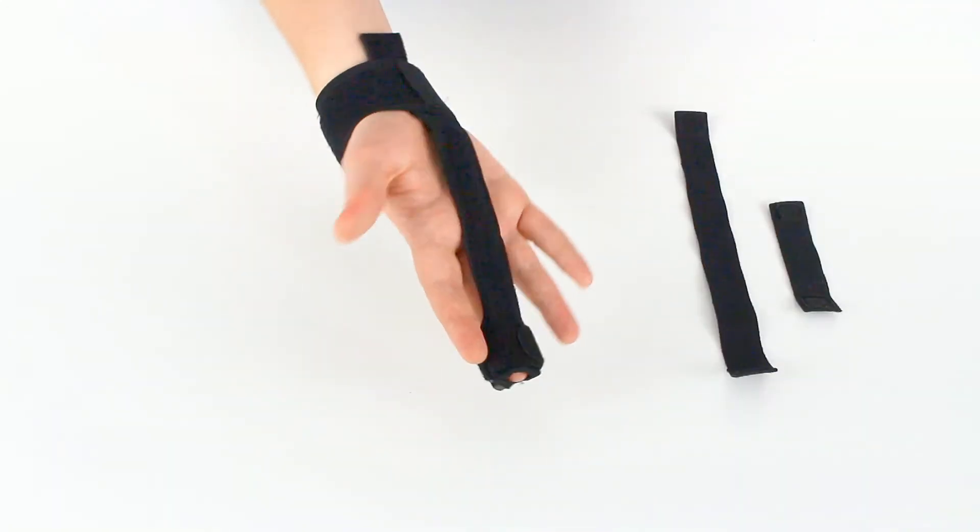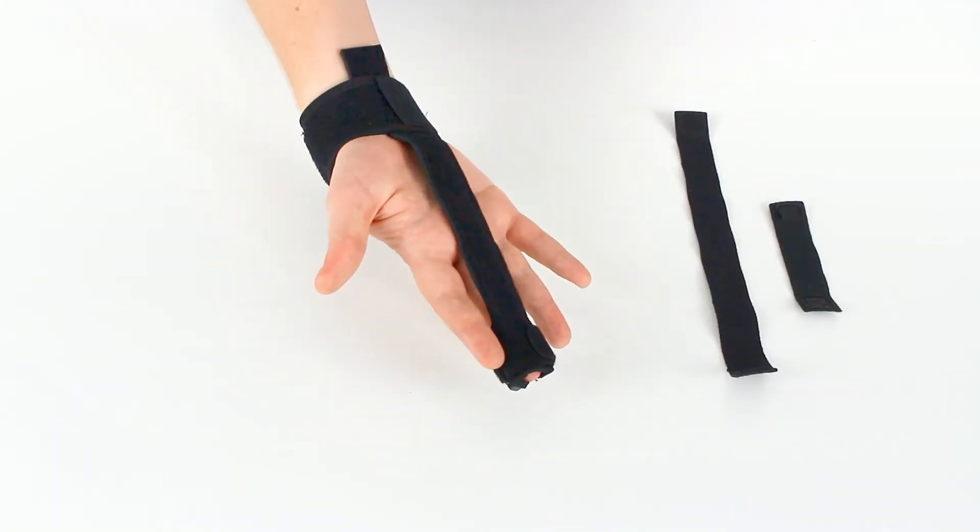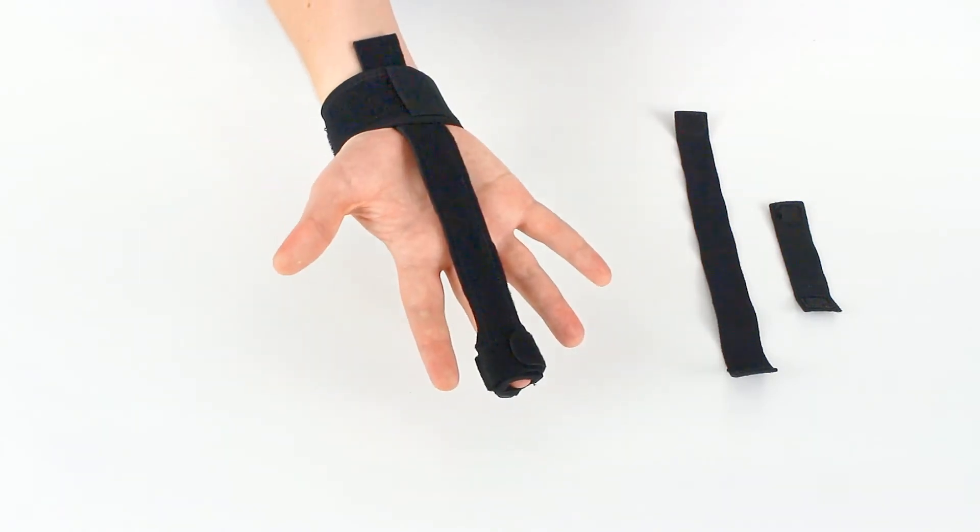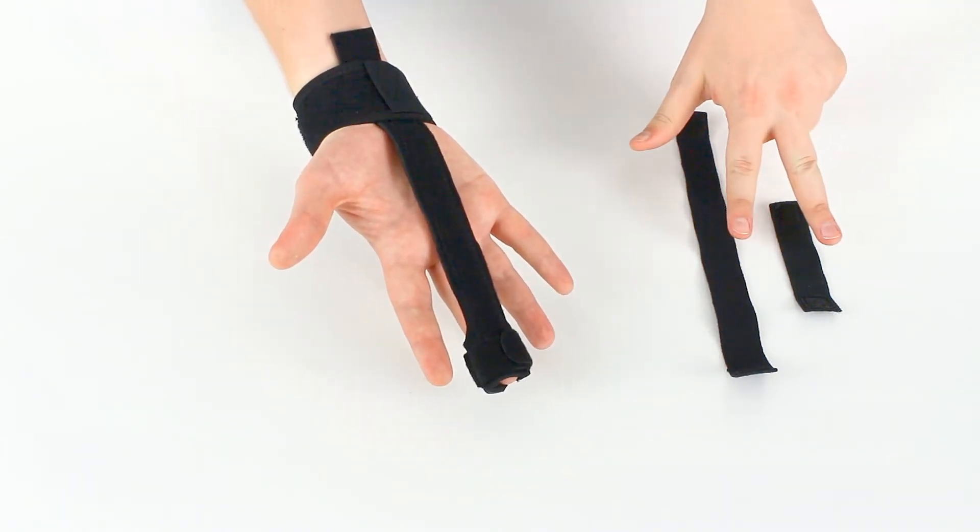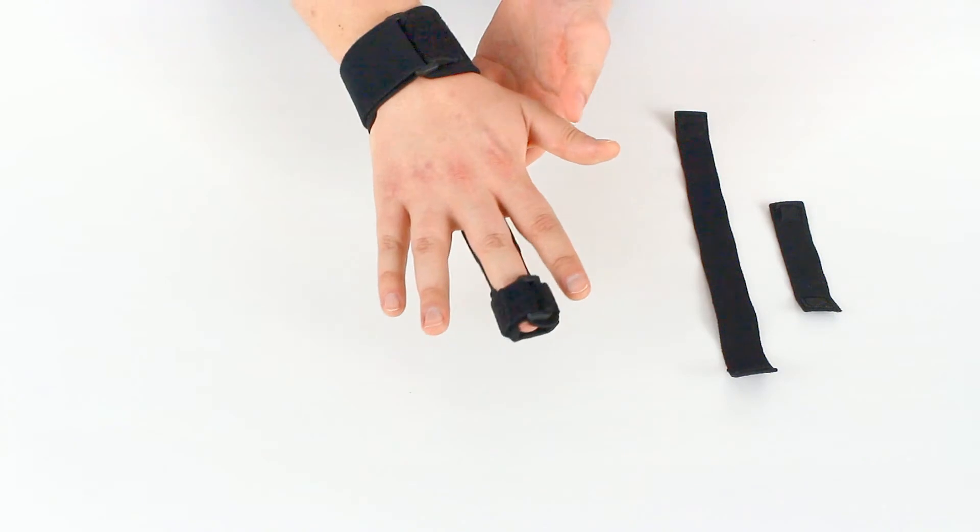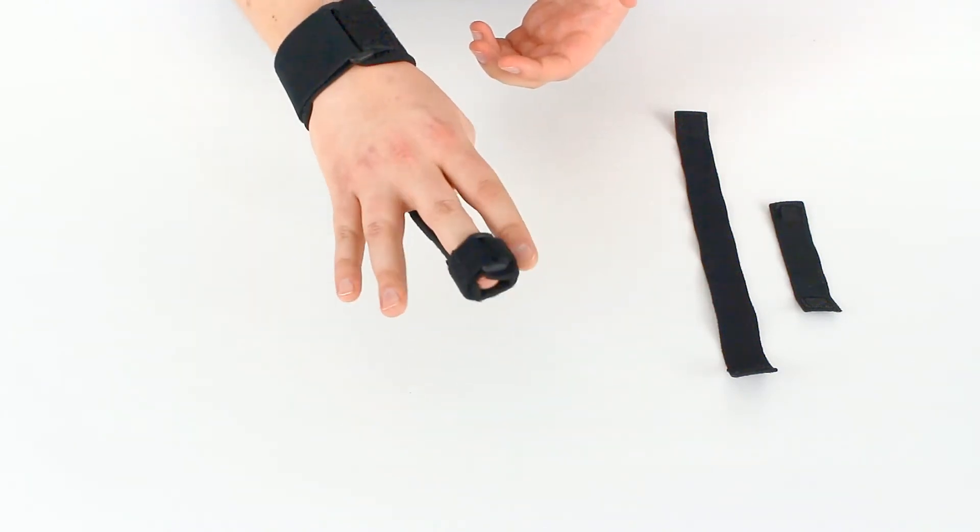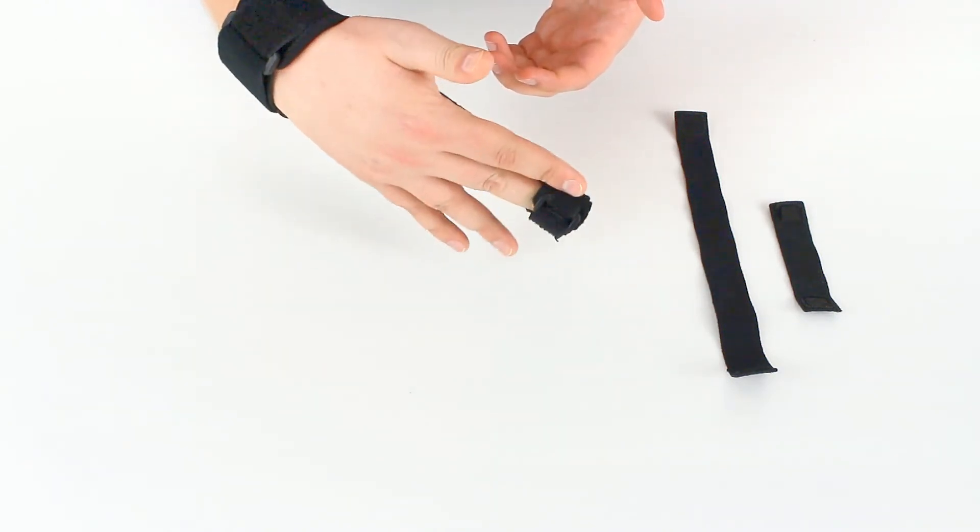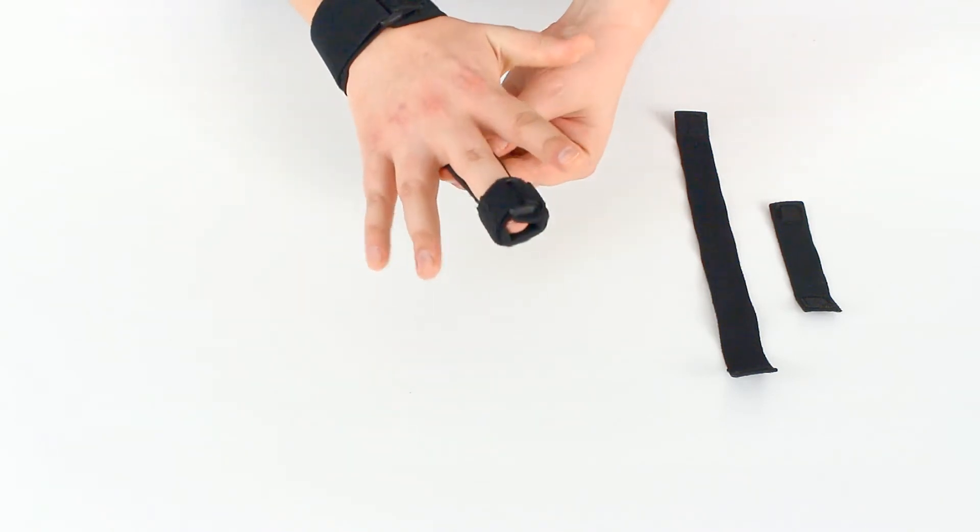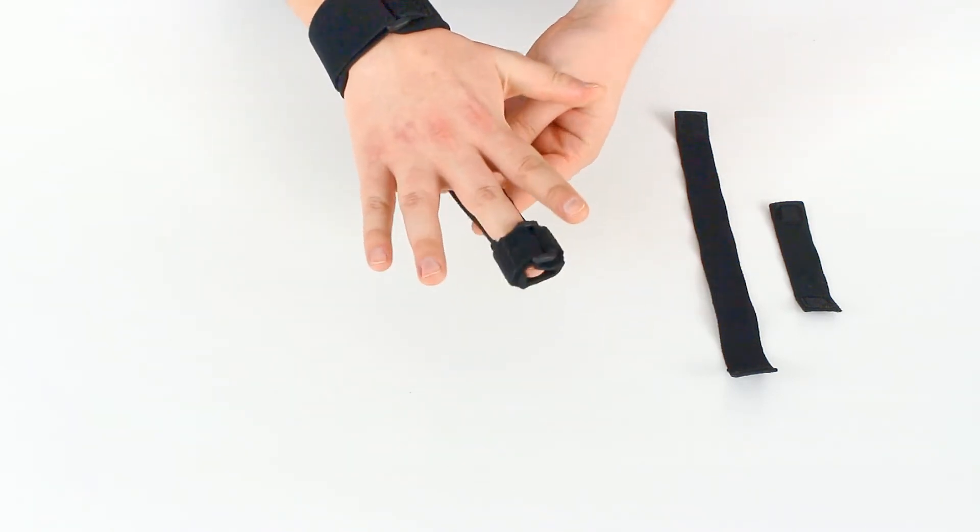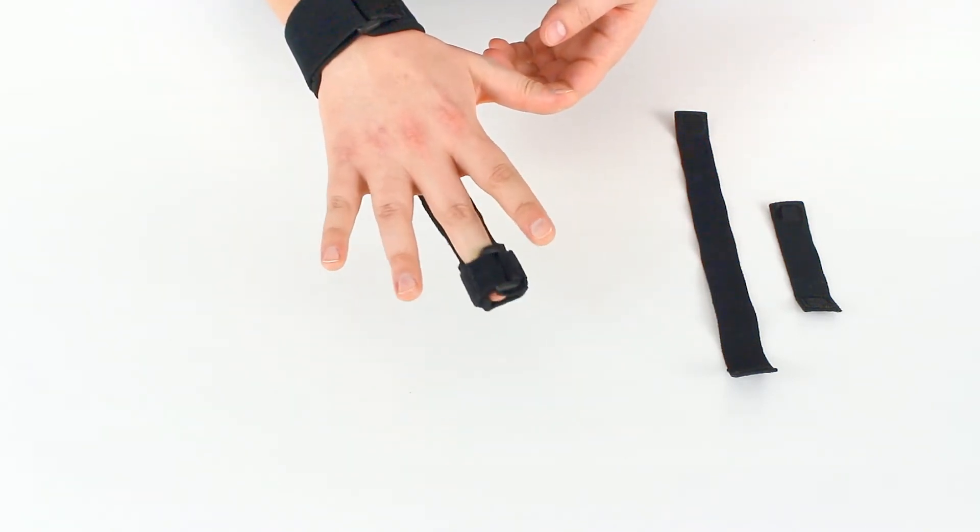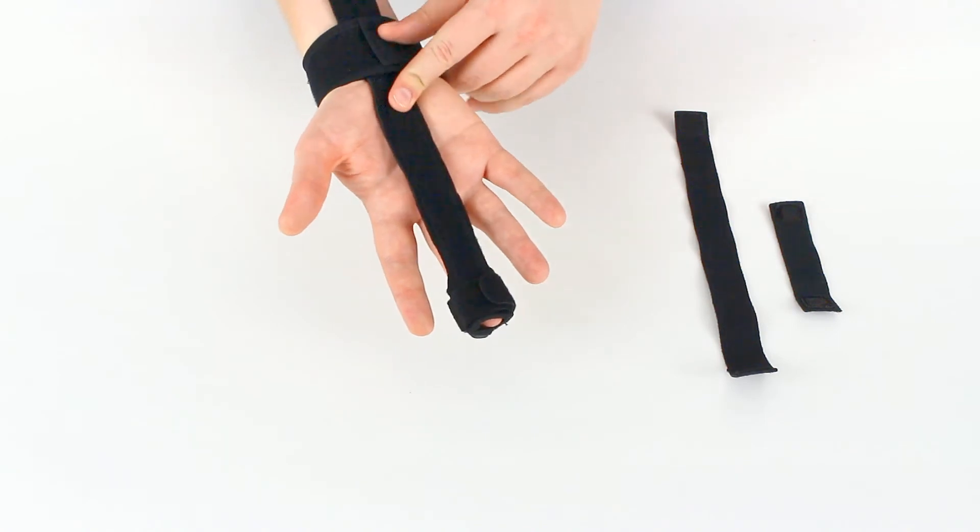That is essentially how to attach the full finger trigger splint here. The other two straps are optional. If needed, you could just use the splint this way. You still have a little bit of flexibility in your hand, but your finger is more or less immobilized there. You're going to have a hard time flexing it.